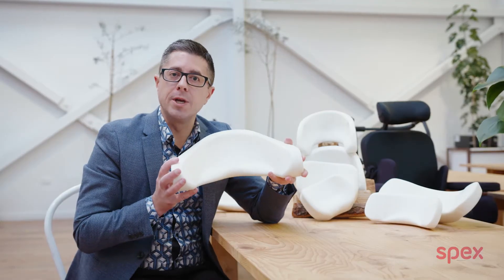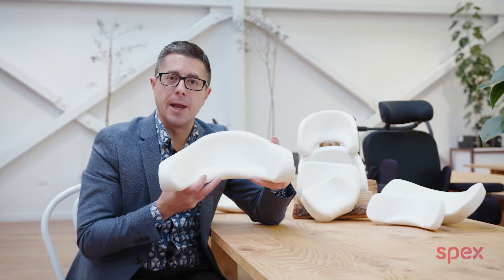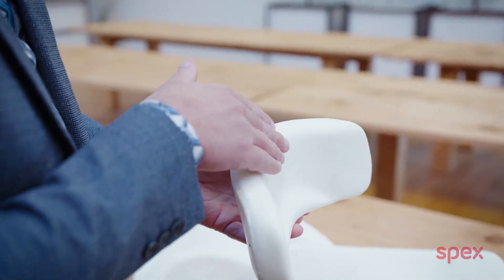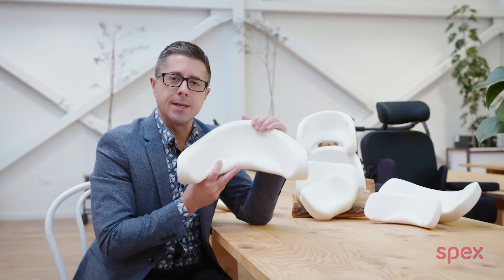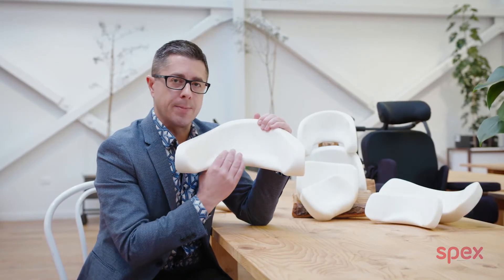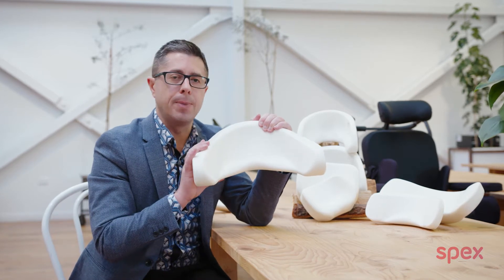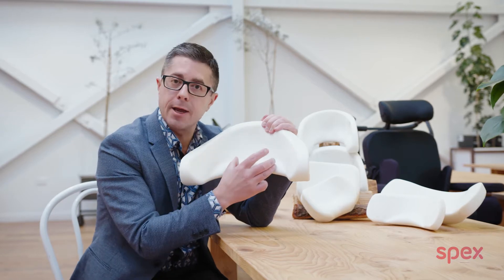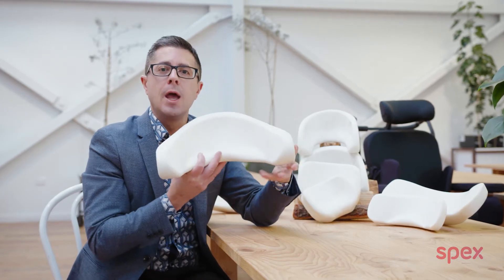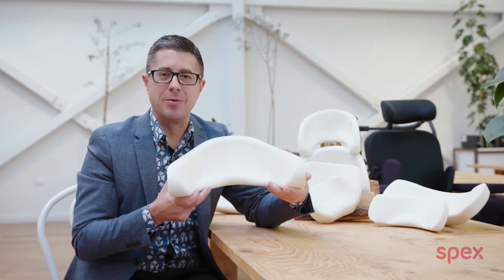The shapes have all been geometrically and biomechanically designed to give greater support and stability for head positioning for people in their wheelchairs. A lot of attention to detail is in the occipital shaping and the lateral control, ensuring that vision is not impaired and that the lateral control and posterior pad control have all been attended to in this new and exciting head support range.